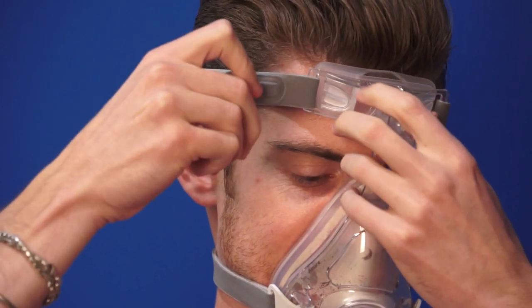How does it work? Very simple. You turn it on, you add water to it. We've talked about in the previous webisodes how much water is required. You put it on your face like you were Darth Vader.